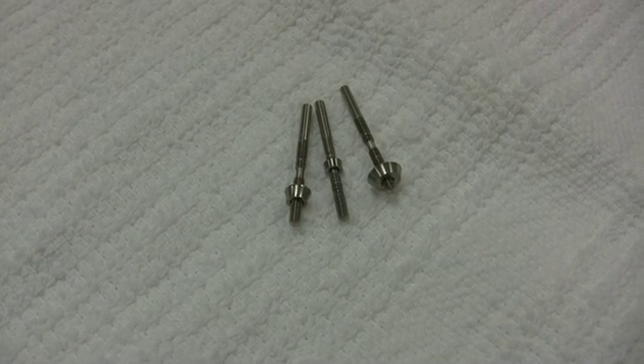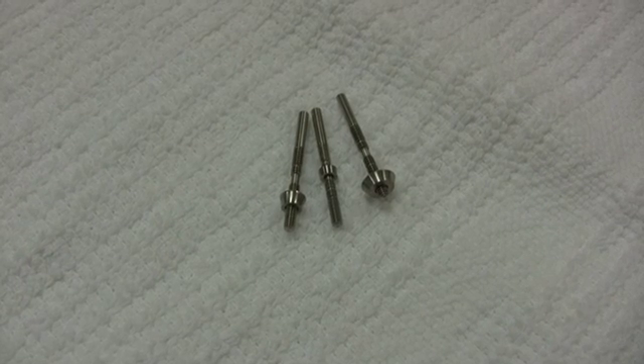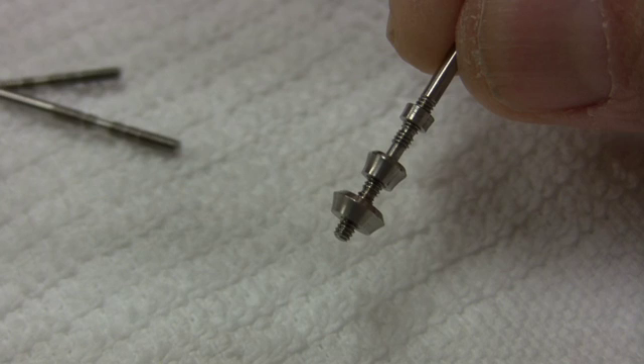In this video, I will describe the features of the gauge and how to use the gauge to place implants in the ideal three-dimensional position. Each collar represents the 1.8mm polished surface and diameter of the implant platform.